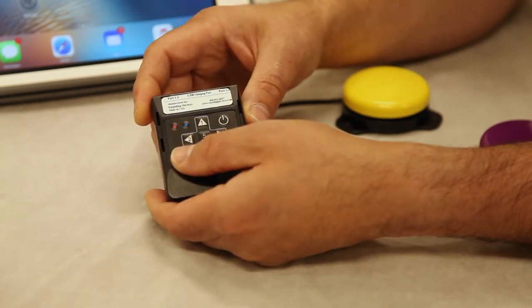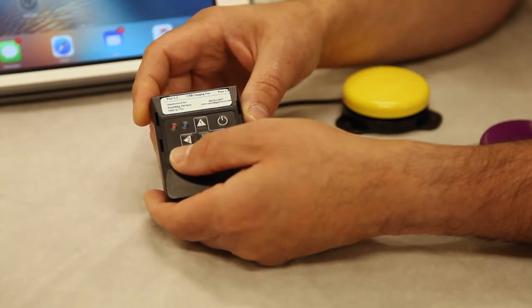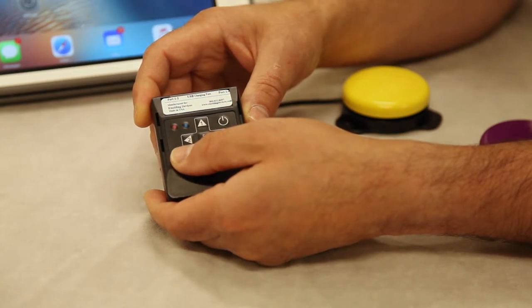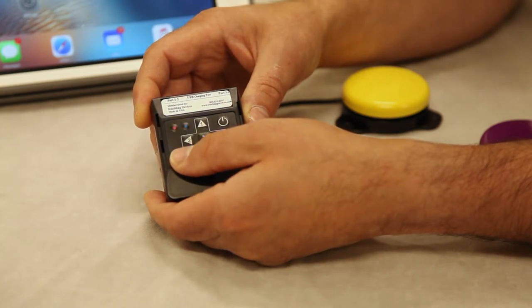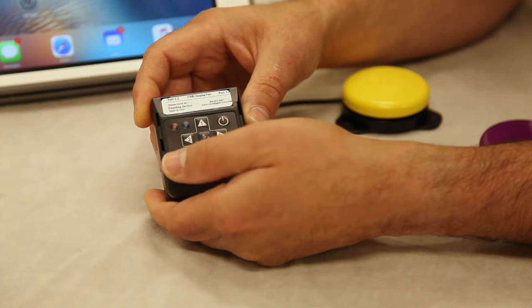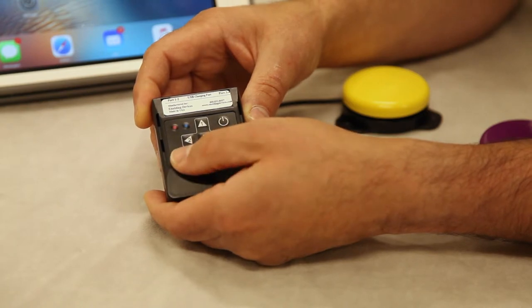So we're still in mode 5, so I want to show you how this works with a switch friendly app, and then I'm also going to go back, change it to mode 4 to show you how it works with YouTube.